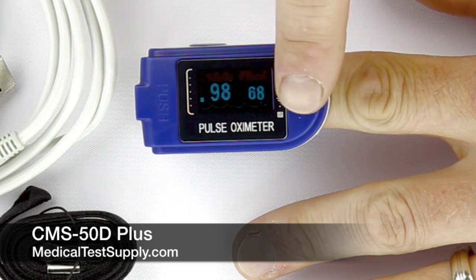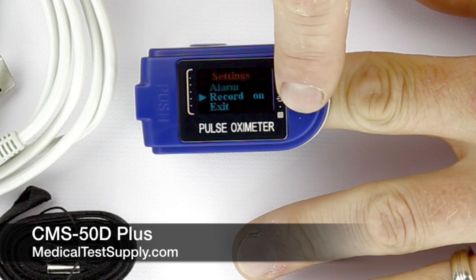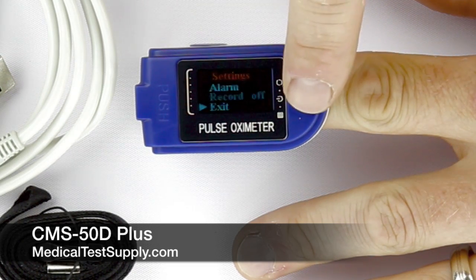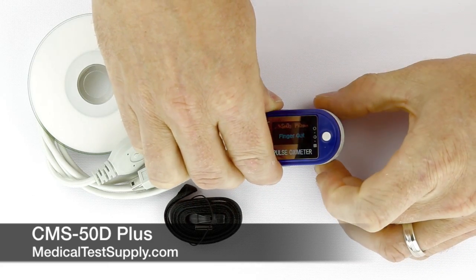This product is a great choice for physicians, healthcare providers, clinics, dentists, and for performing spot checks and conducting sleep studies. It's a full-featured device with alarms, pulse rate sound, and the ability to record all-important oximetry data.